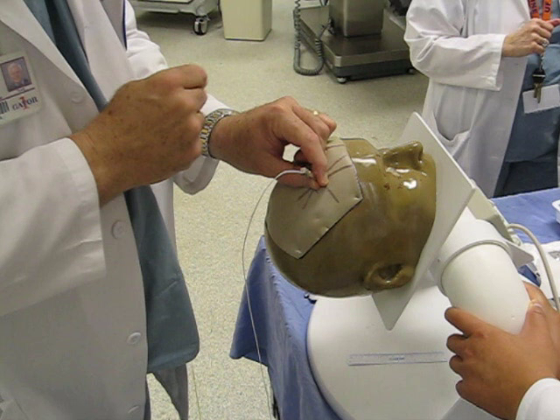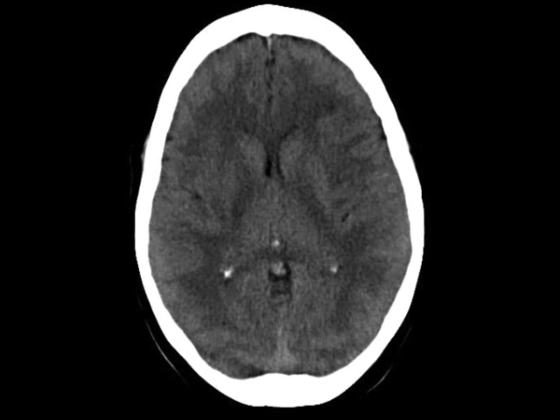Welcome to the University of Florida's Ventric Marksman. You will place a frontal ventriculostomy catheter. Your score will be partly based on the total time and the number of passes you take. The patient has small ventricles and no midline shift.